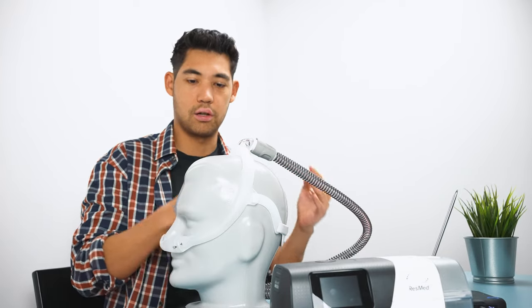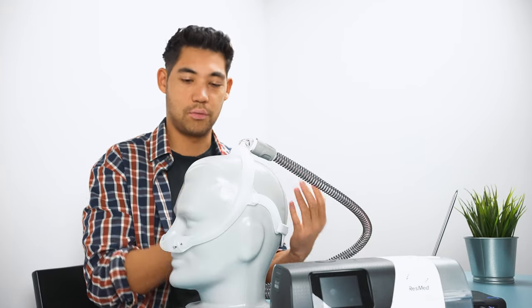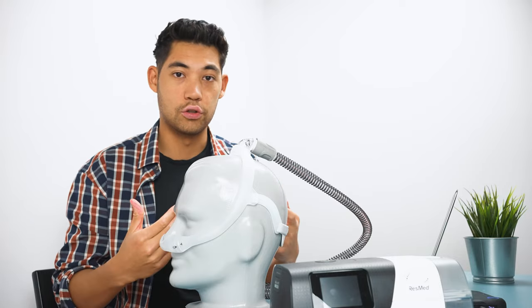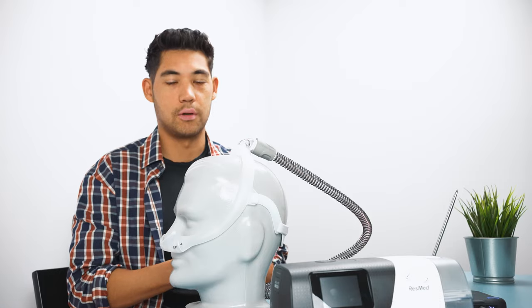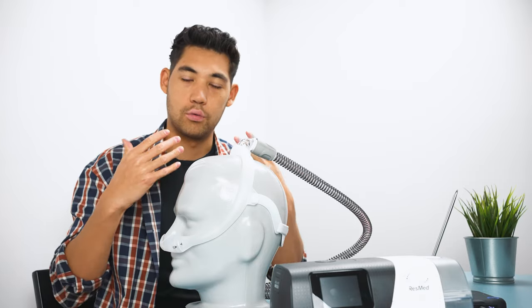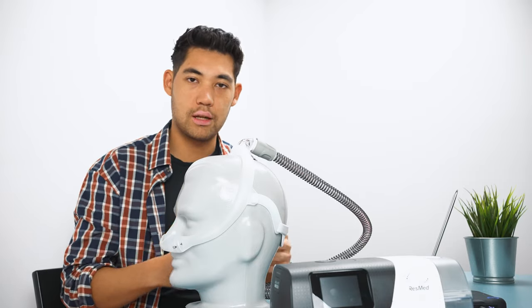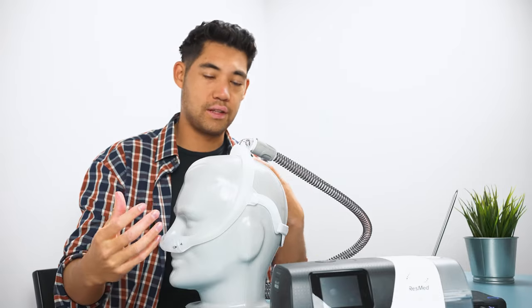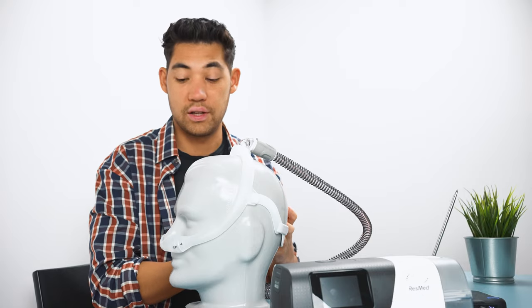All CPAP masks are good for different people, different face shapes, different nose shapes, and different nose rigidities. I don't think this is talked about enough. A lot of people have very rigid noses with a lot of cartilage in it. I have a very squishy nose. So these different noses and different face shapes can change how well a mask fits.